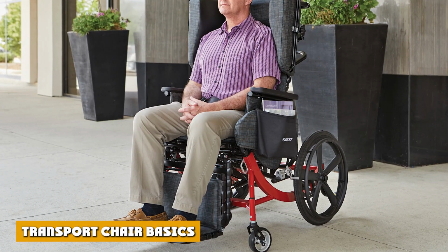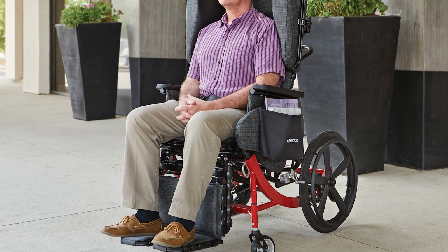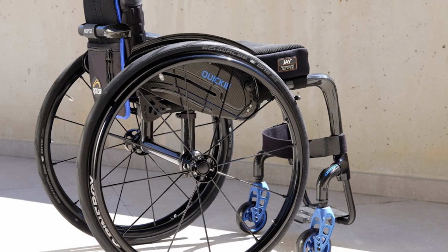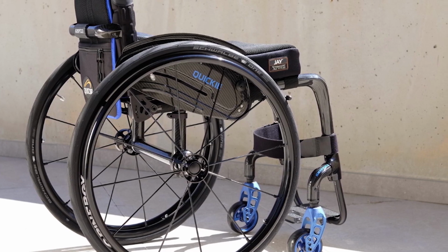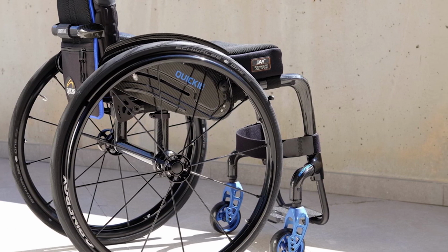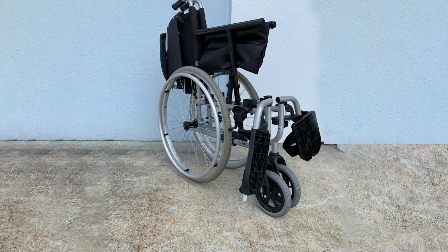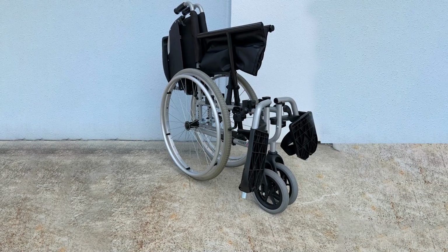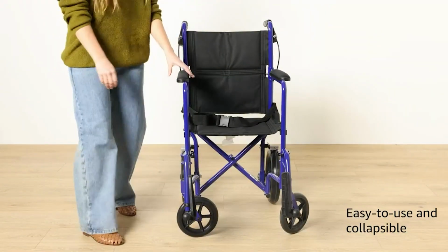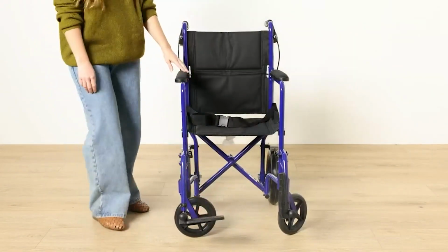Transport chair basics. Transport wheelchairs, though similar to traditional wheelchairs, have a couple of distinct differences. They are more lightweight and compact, and, most importantly, they do not have rotating handrails because they are not designed for independent use. Instead of being pushed along by the user, transport chairs are pushed along by a second person, a helper. So, this is a two-man chair, commonly seen in retirement homes and hospitals. It only moves if a fully mobile assistant directs it.